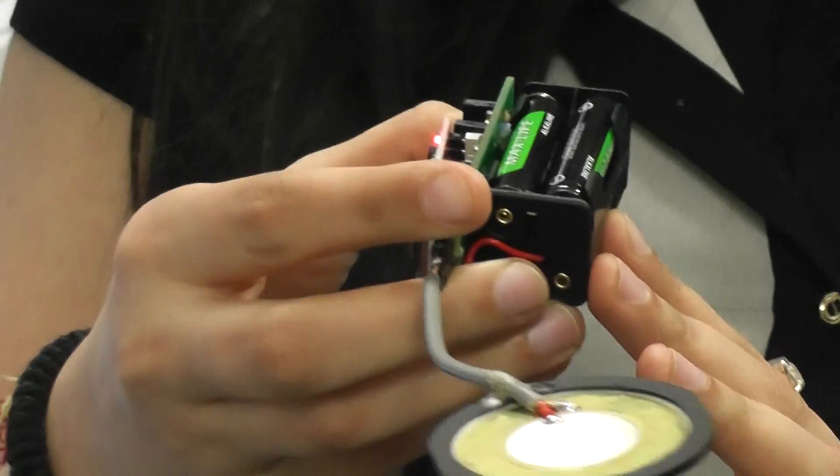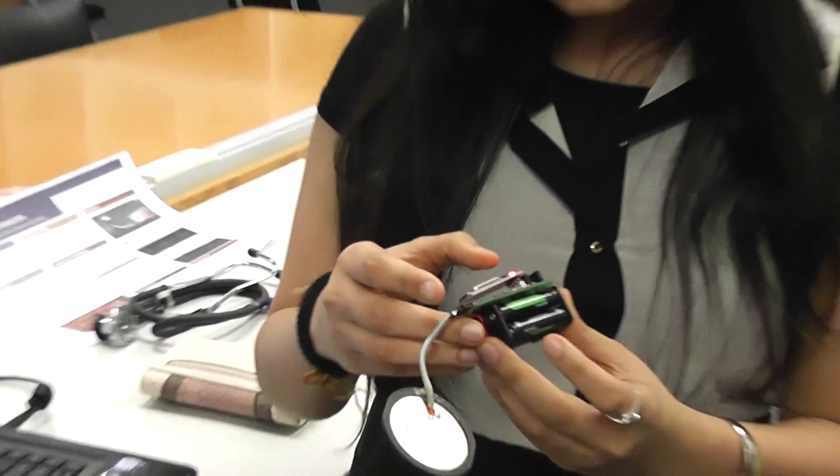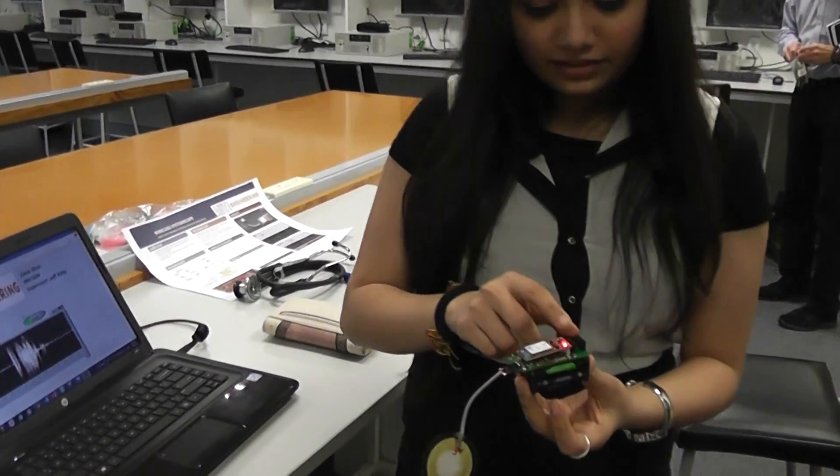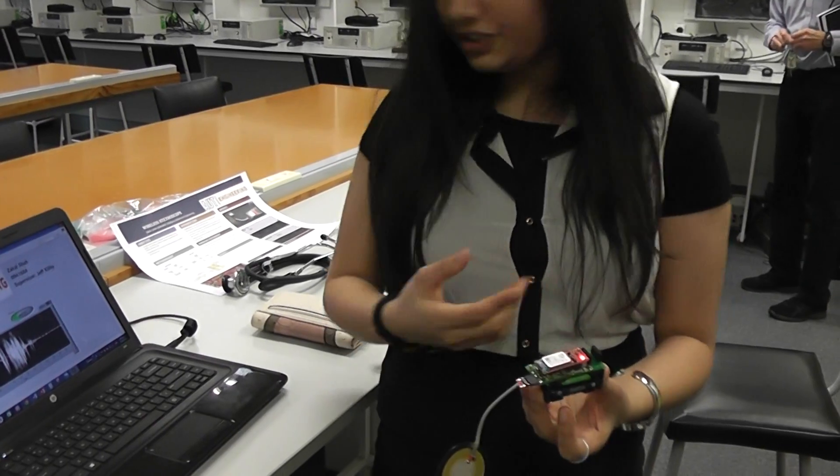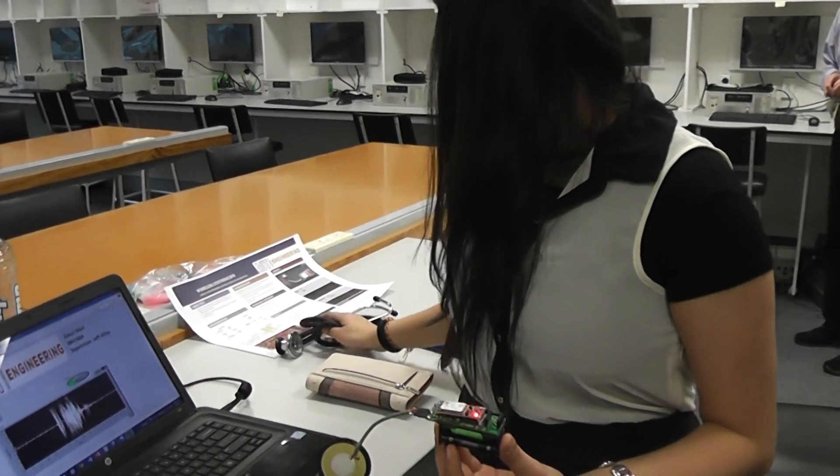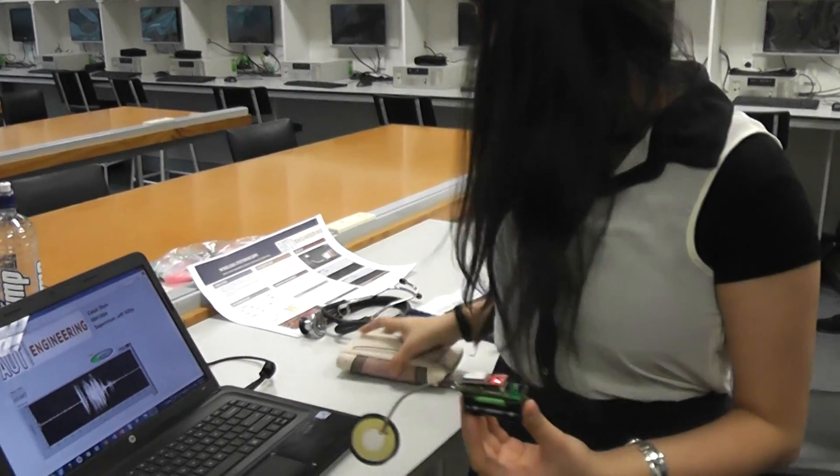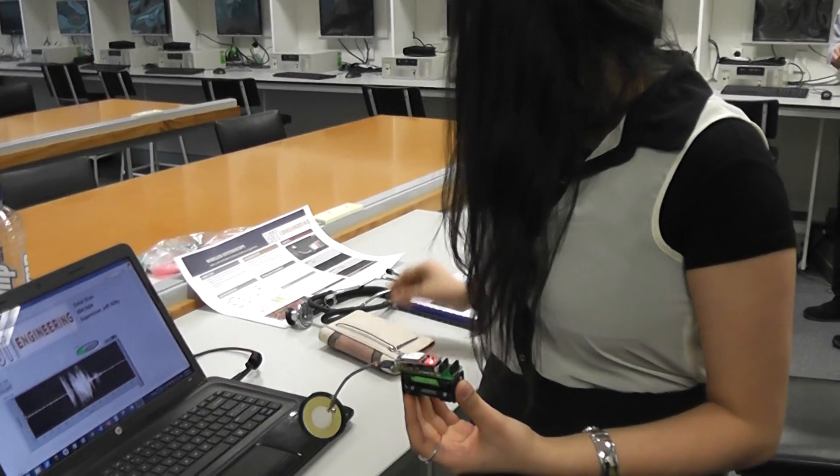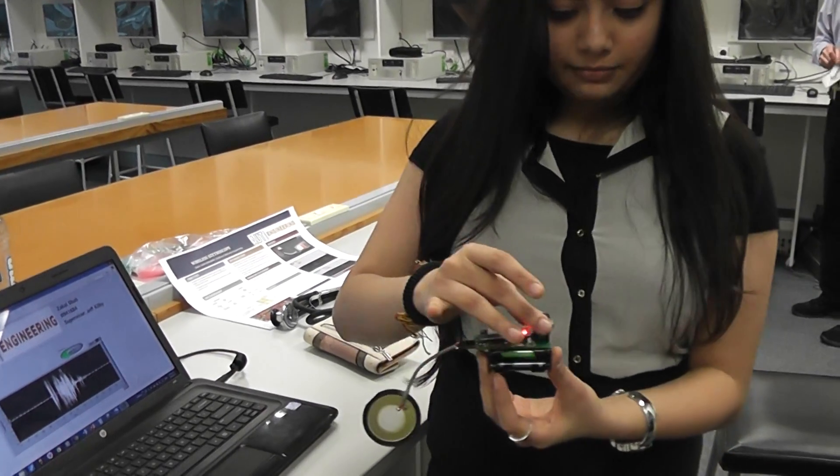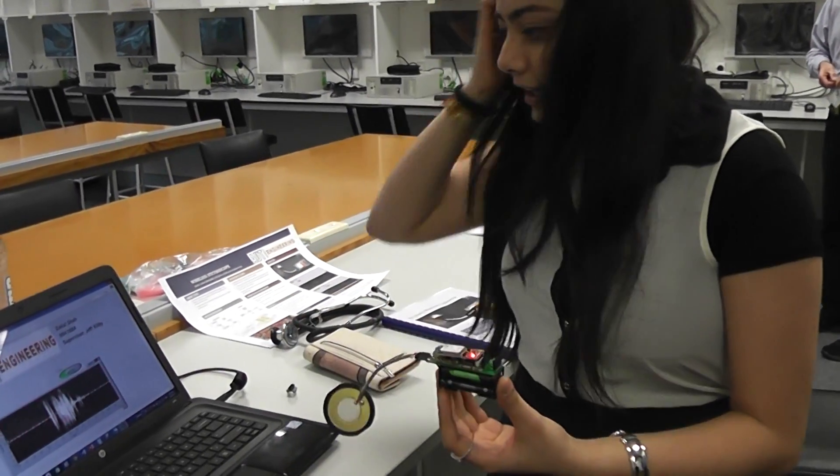And these here were just to program the chip with JTAG. So the JTAG just sits on here, which is here. Basically I don't need it right now, so it's on the one side.